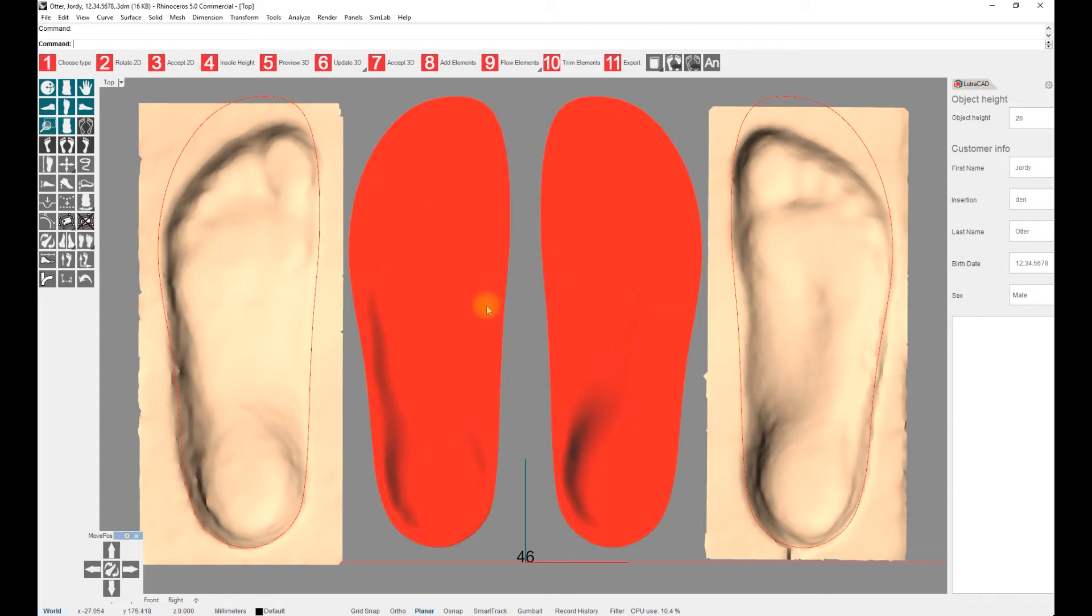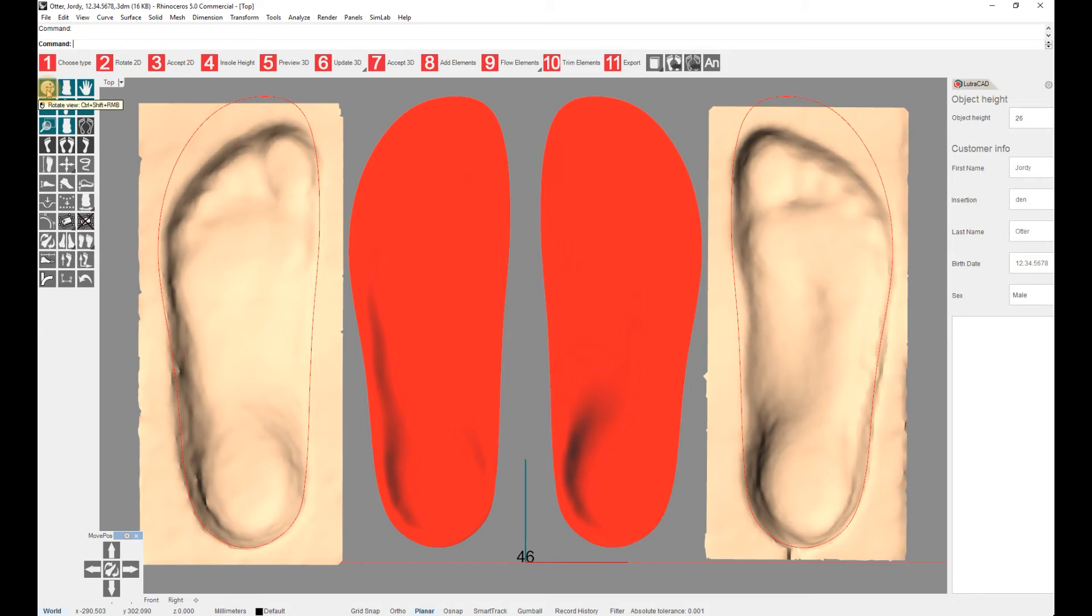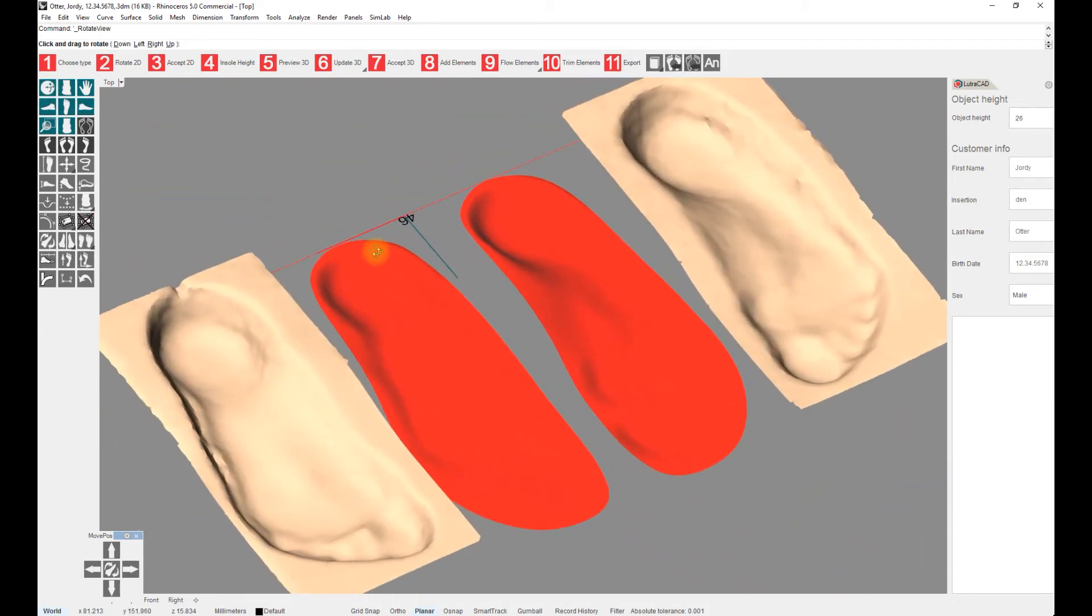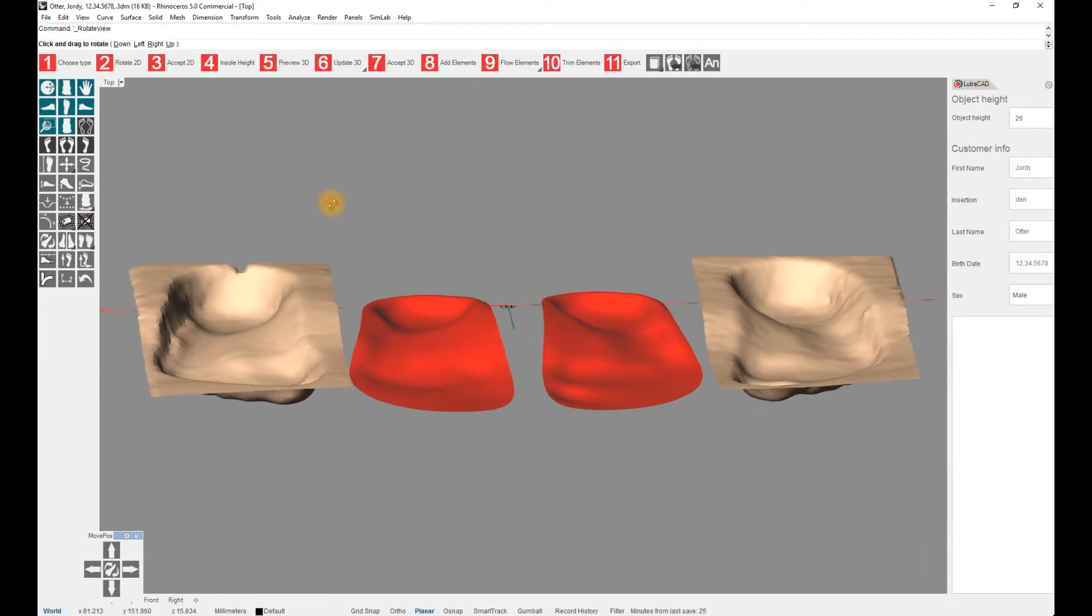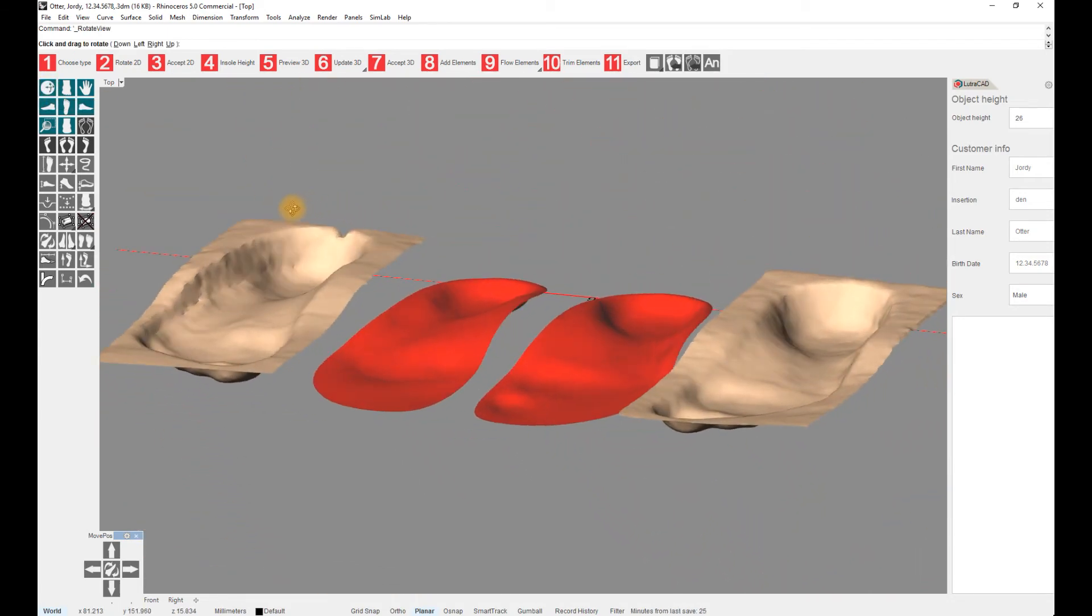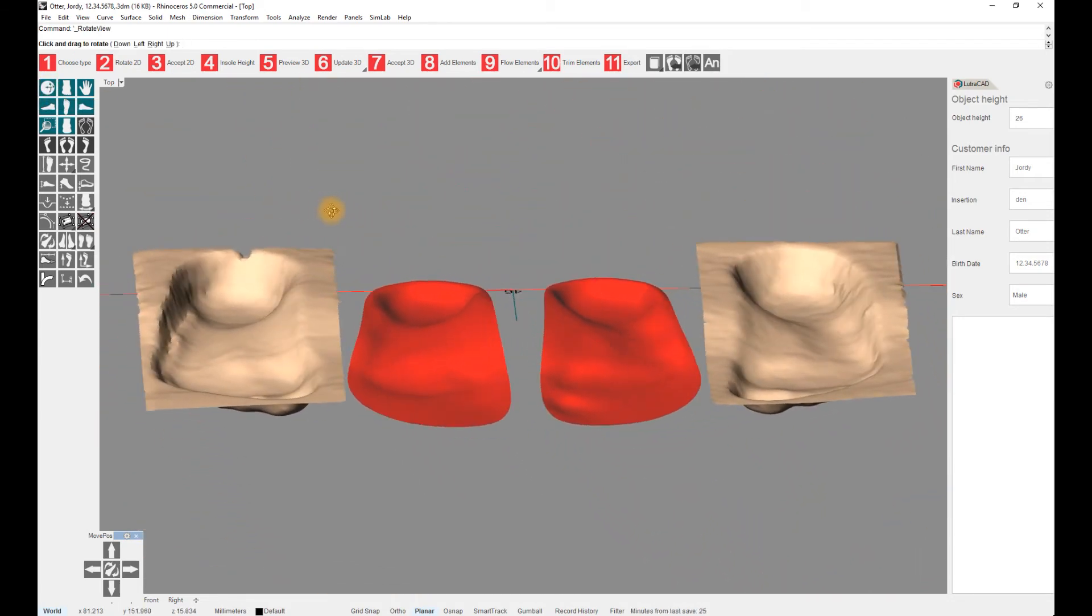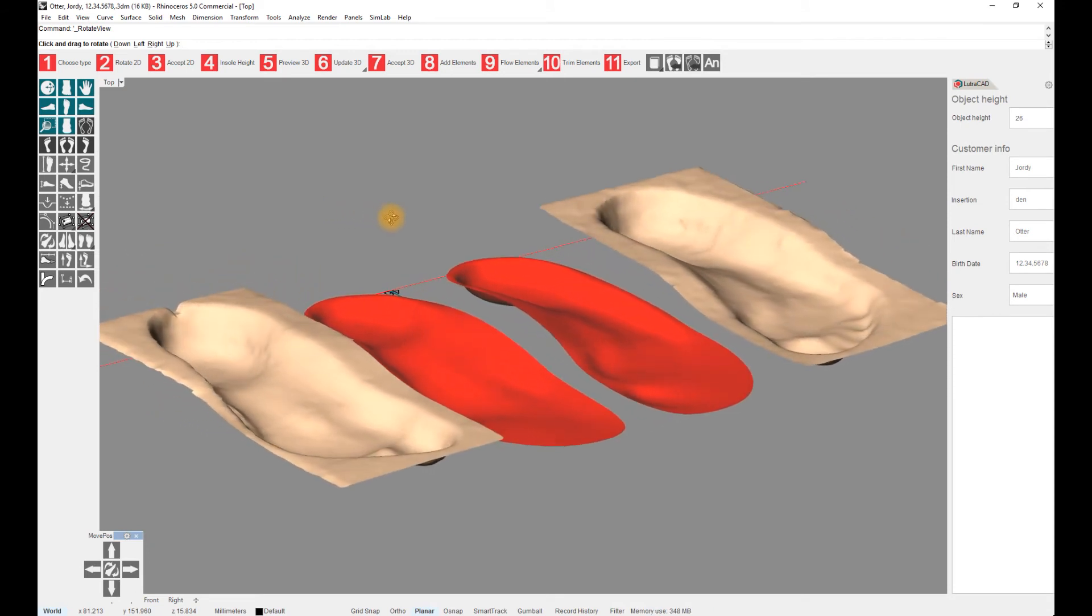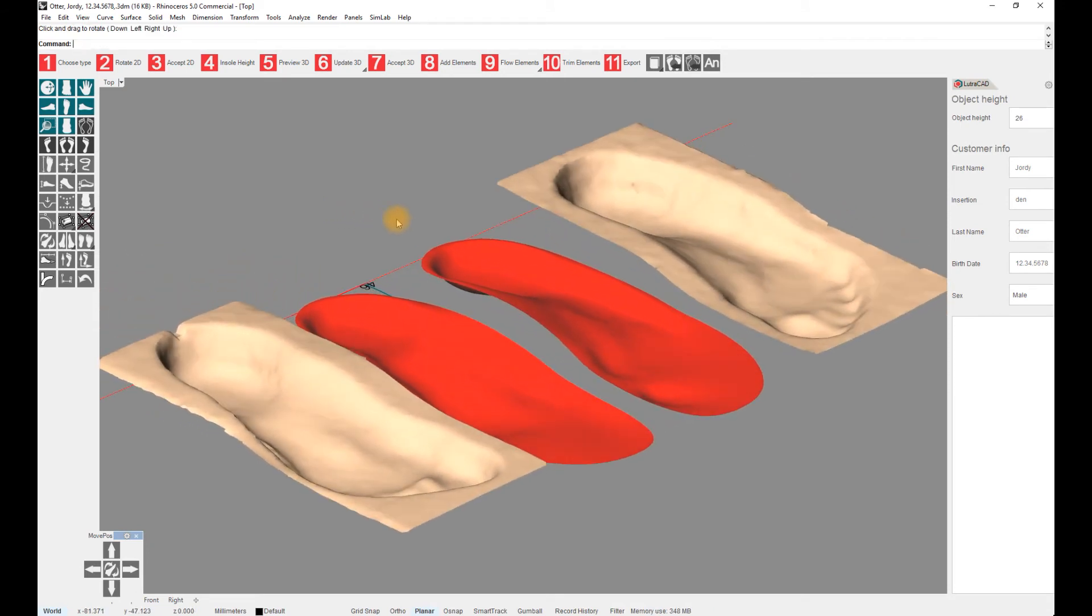The preview will be shown in the middle. To have a better idea of how the insole looks, the screen can be rotated by the top green button on the left toolbar. Move the mouse to the screen and hold the left mouse button while moving your mouse around. This will rotate the screen. To go back to the top view, use the middle green button on the left toolbar.